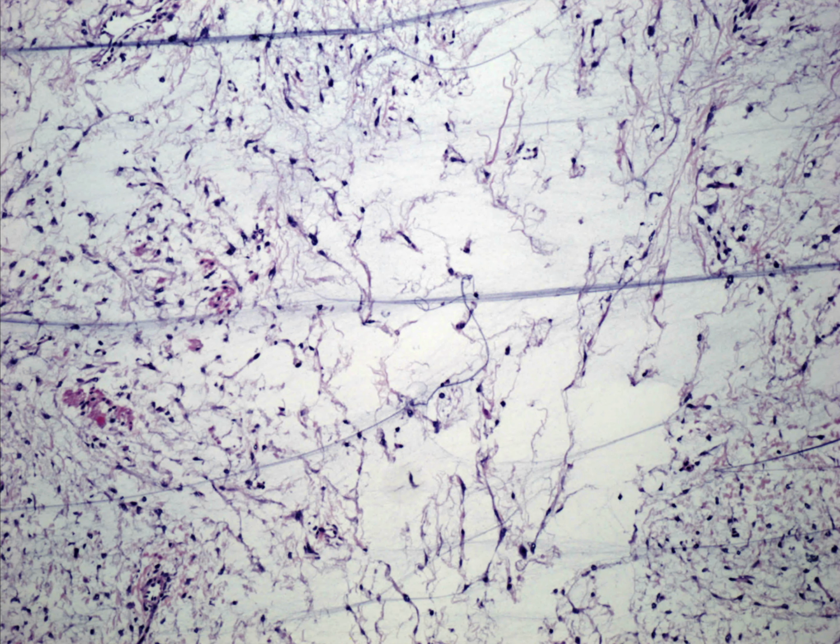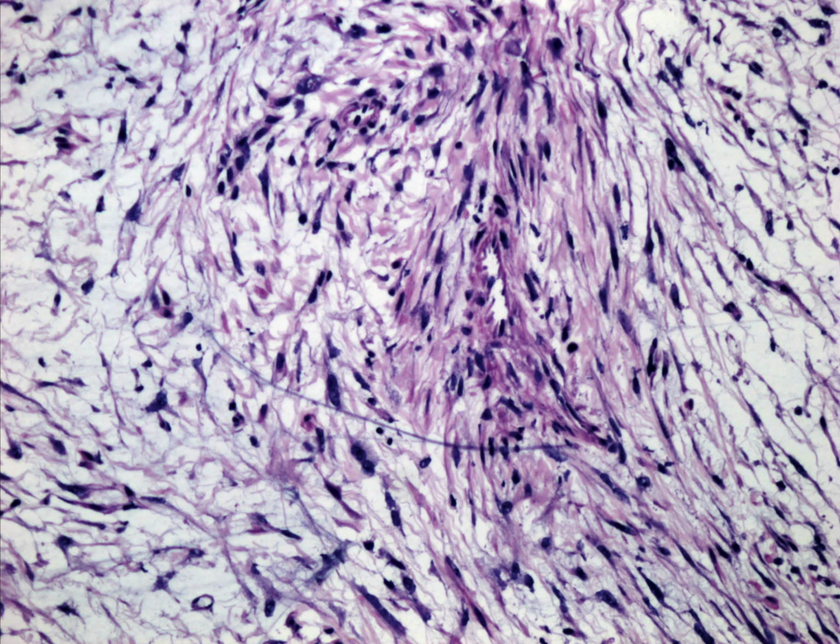Okay. The next image is another image of the frozen section, which shows a higher power in an area where it has more conventional areas suggestive of a spindled lesion with elongated nuclei. The cytoplasm here looks a little more eosinophilic to amphophilic, but then you do see it sort of merging with those areas which are more characteristic of the former slide, with more swelling and space between the cells. I would say that the nuclear pleomorphism here is a little bit greater, although I always interpret that with caution on frozen sections because the artifact of freezing the tissue is so marked.